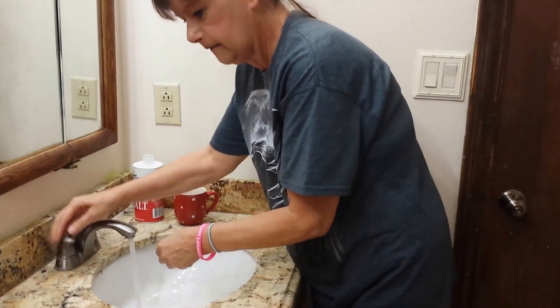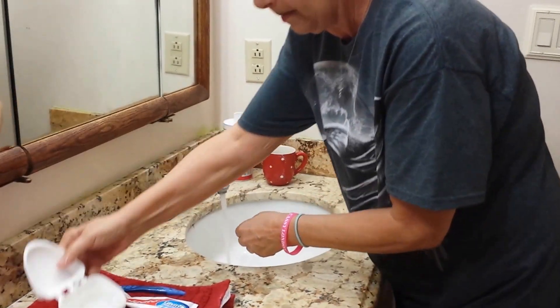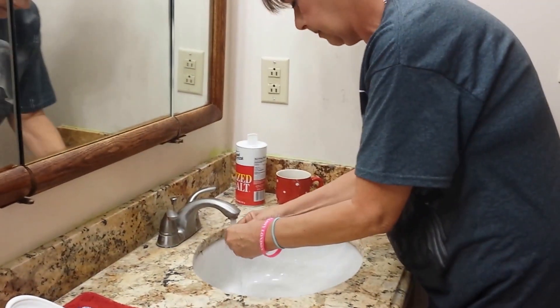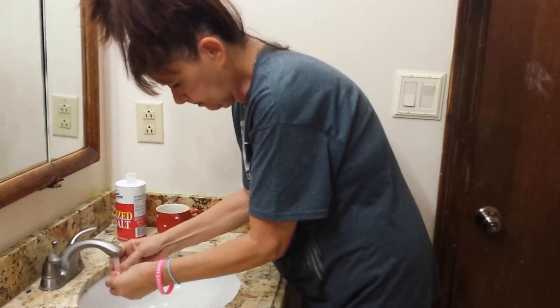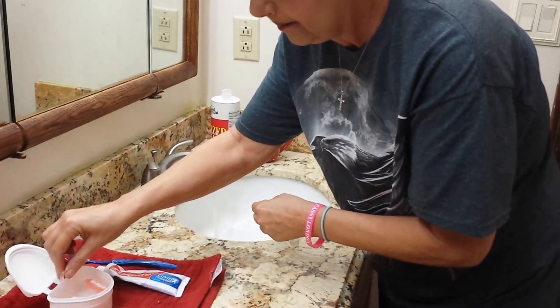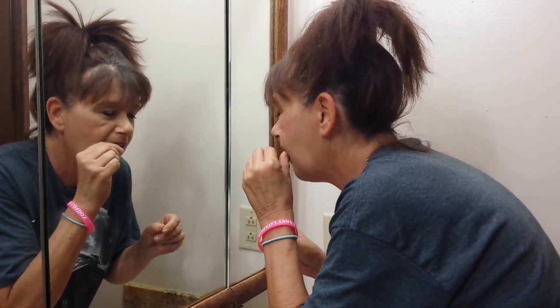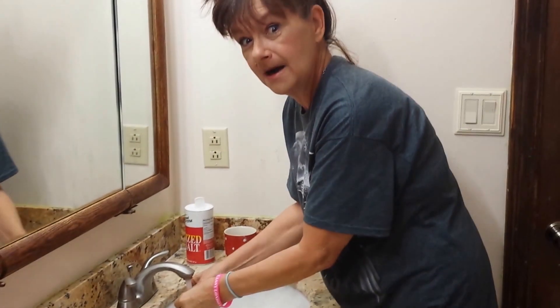What you want to do is have a little bit of lukewarm water, put your teeth in and go all the way up. Make sure those are all clean and all good. The first one is done and it's got a little basket here. Now here come the top ones — today I had a problem the first time I tried, but I'm getting pretty good at it now. Now the top ones are out.